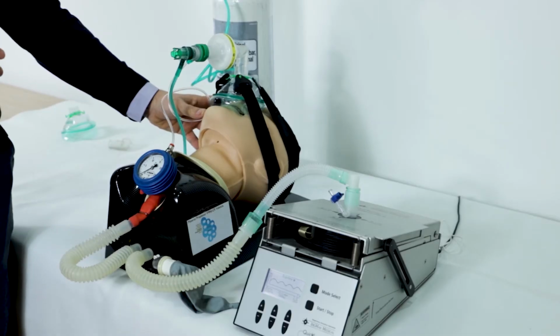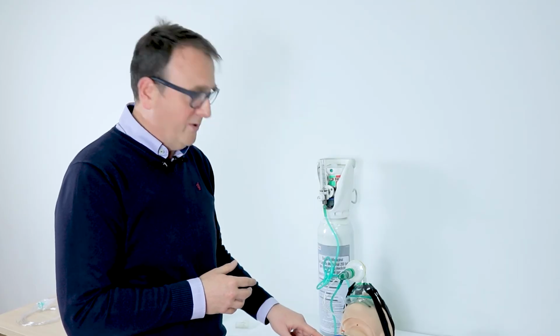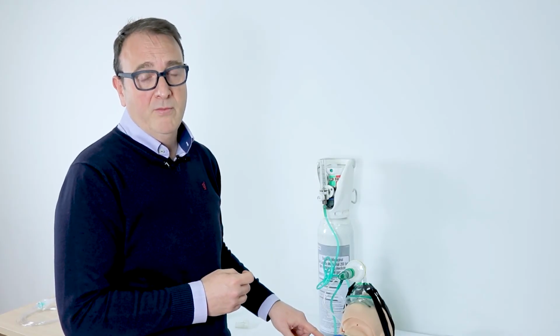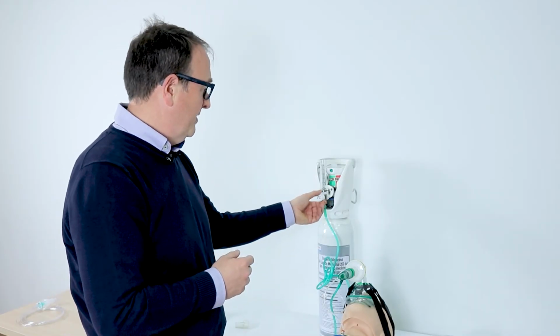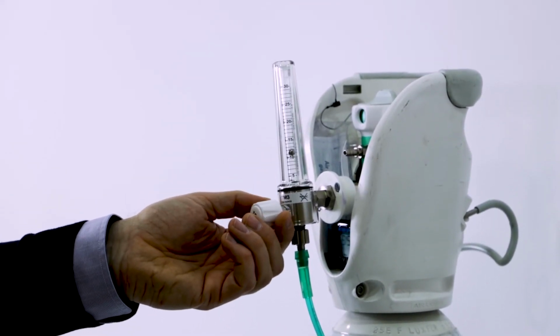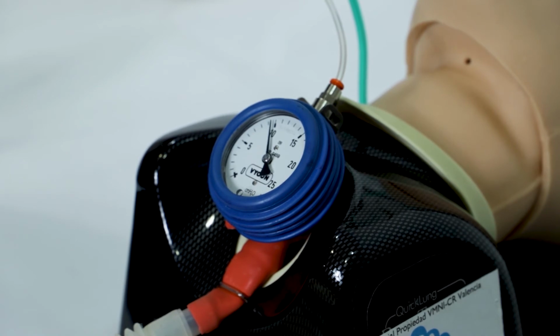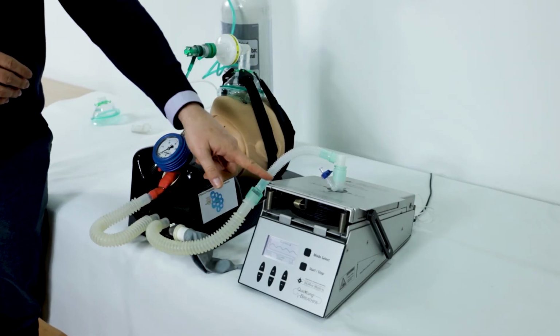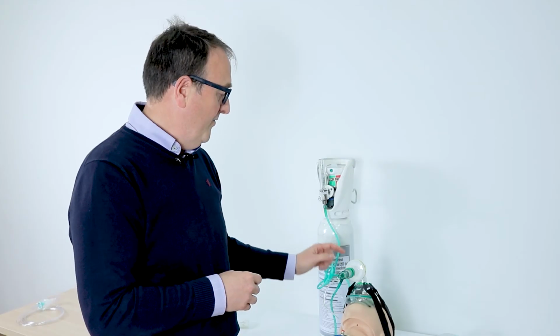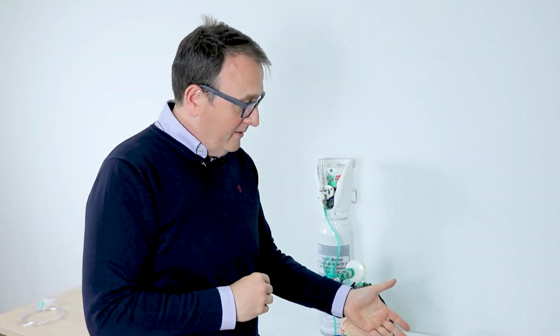So this is the system assembled in a simulated lung. We have a mannequin here, and here we have the mask, the filter, and the Boussignac valve. Also, it's important to connect the manometer for pressure monitoring. I'm going to show you one important figure: when I increase the flow up to almost 15, you can see the line here. So there is a perfect transmission of the pressure from the Boussignac valve through the filter directly to the lungs.